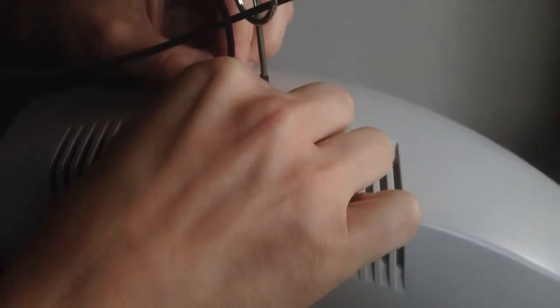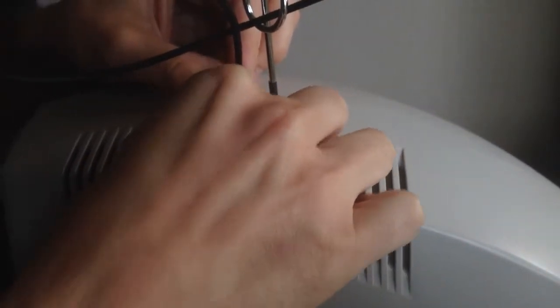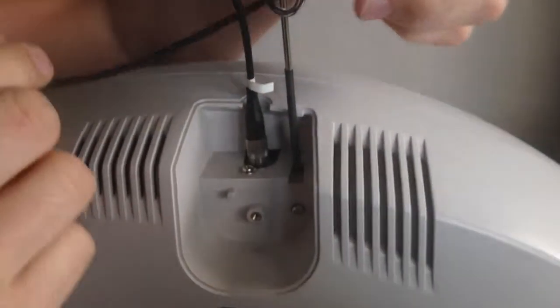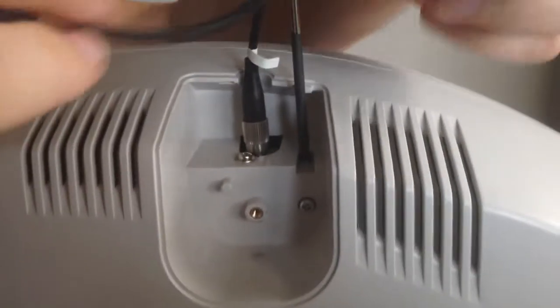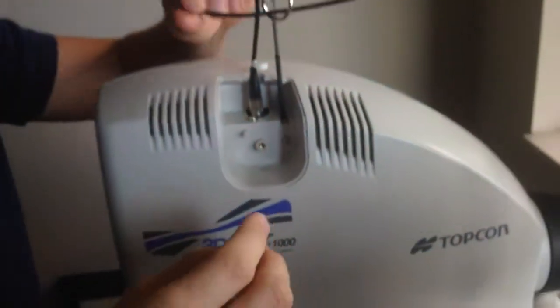Be very careful with the cable. Make sure there's no crimps or bends. It is made of glass. So you need to be extremely careful with it.